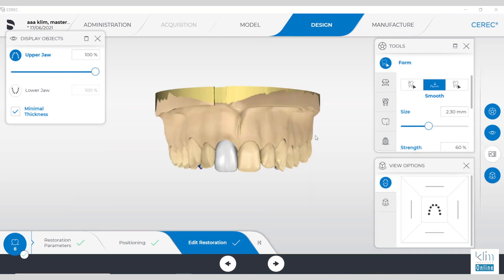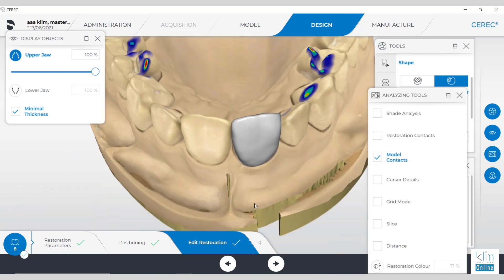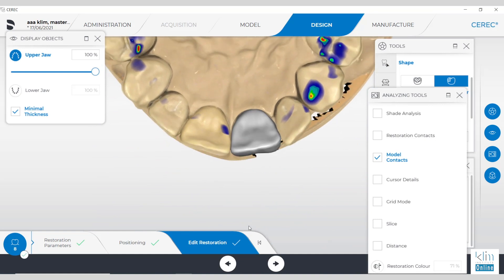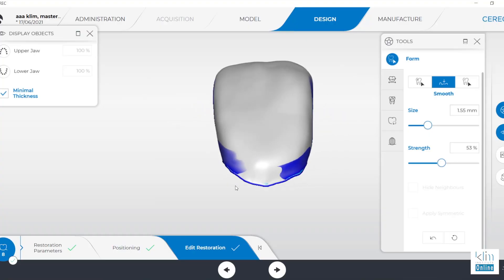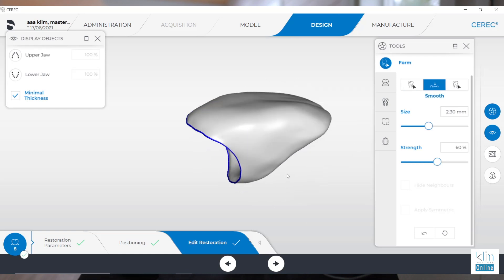Reassess the tooth with the 2D grid and make sure all the features are there that you want. Our goal is to get 95% of that tooth, so when we mill, all we do is texture and we'll have that restoration finished for stain and glaze. That's the workflow for the copy and mirror in the software — the steps are fairly streamlined. When using the two-directional circular tool, use small little motions. There's a characteristic in the software where it's a little concave right above that margin. You have to rotate the model so you're almost looking inside it, so when you smooth and add at that cervical margin, you're pulling it toward the margin.